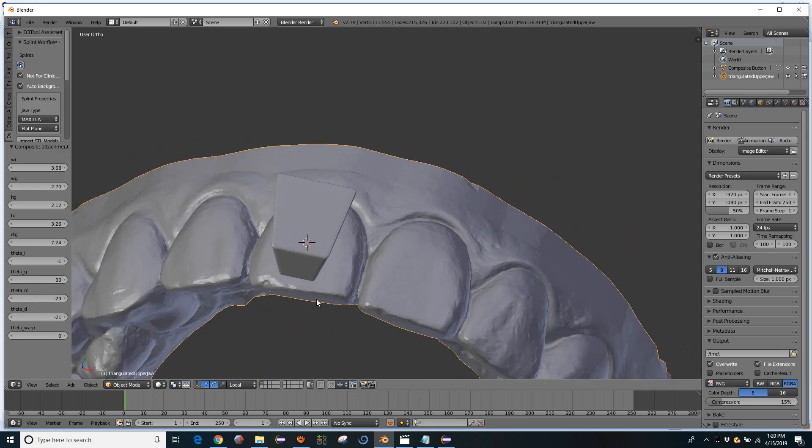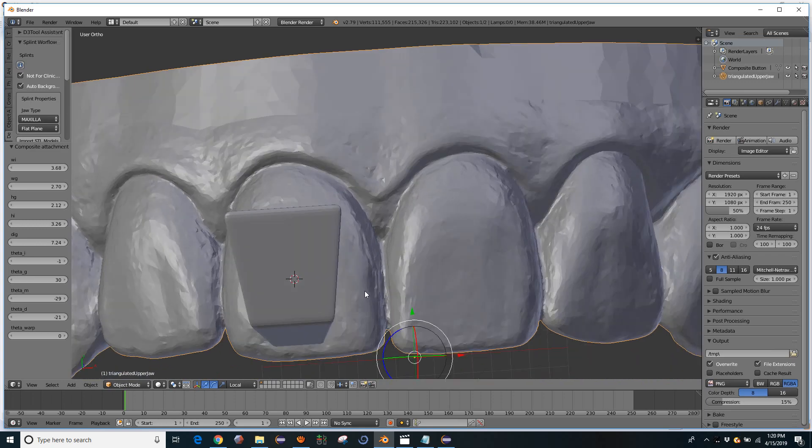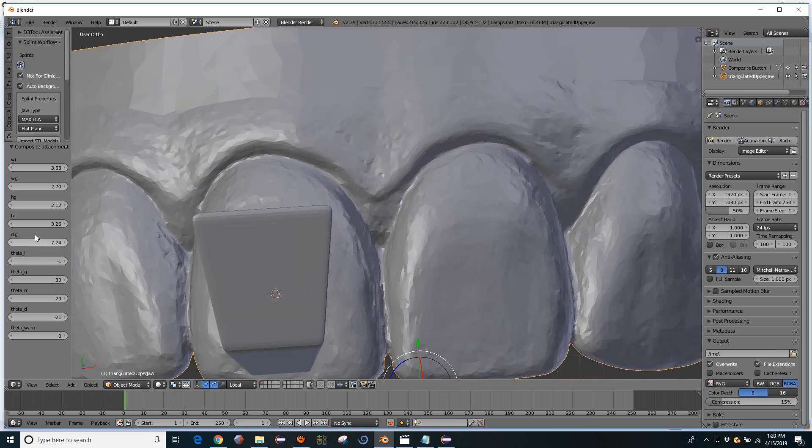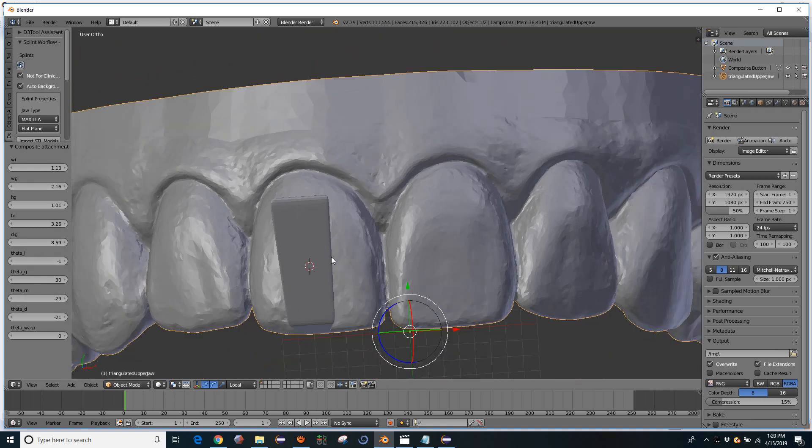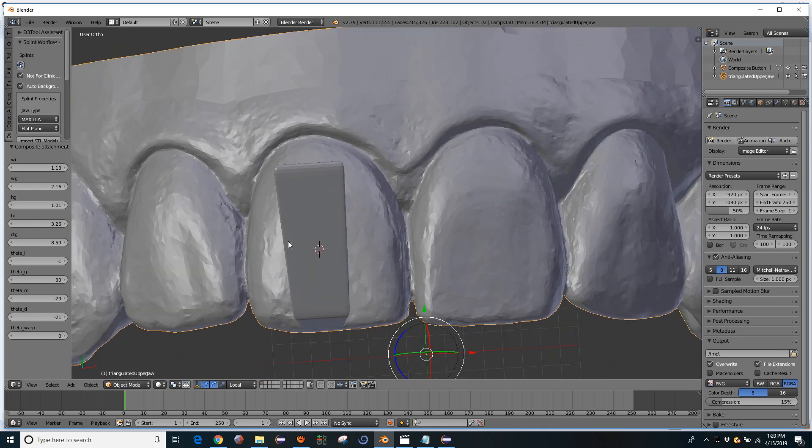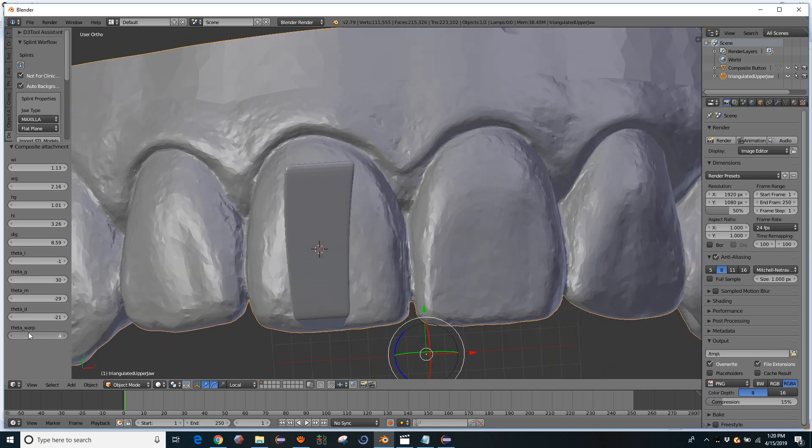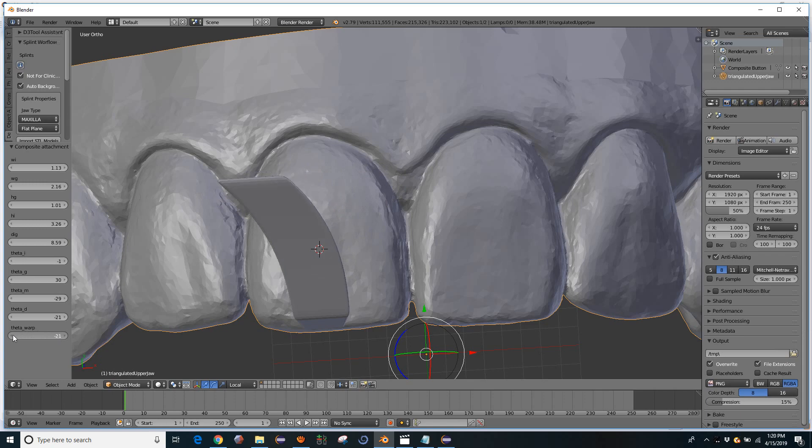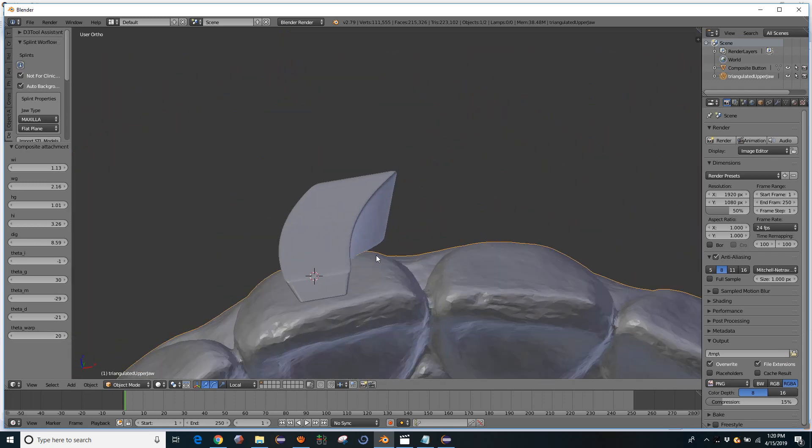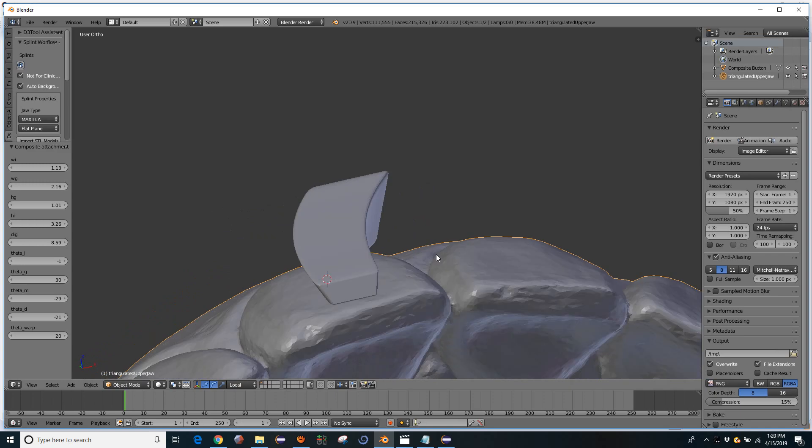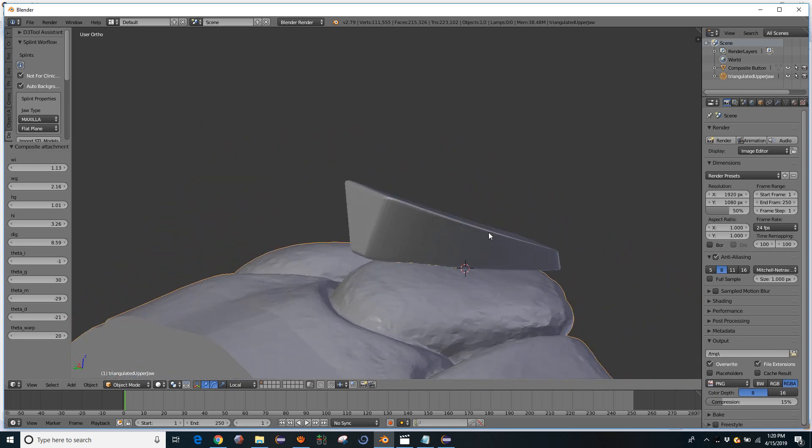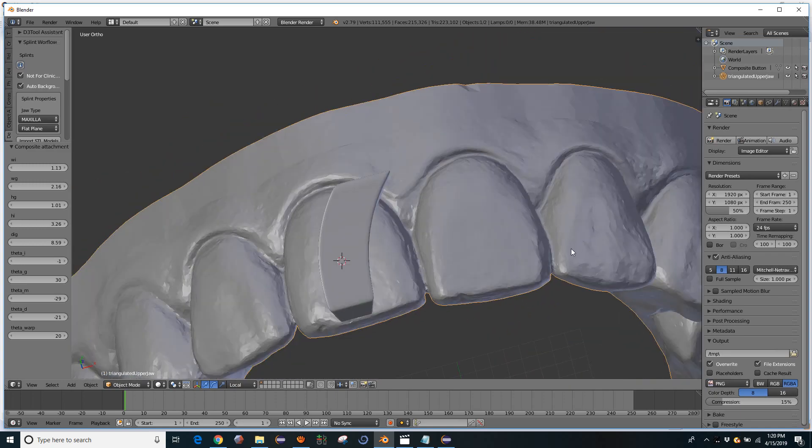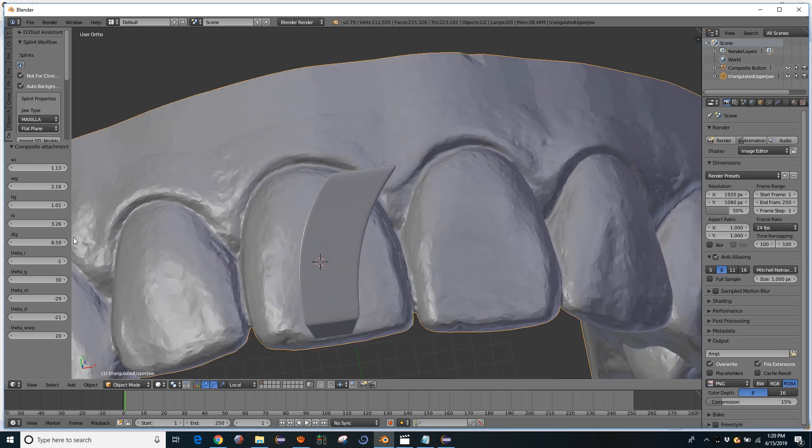Finally, this is kind of cool. If you want to make a thinner and longer object, you can then warp it in either direction. Okay, so that is a brief introduction to controlling the shape of this thing.